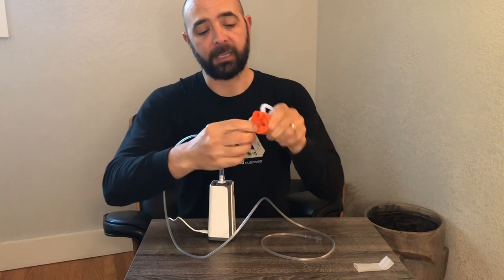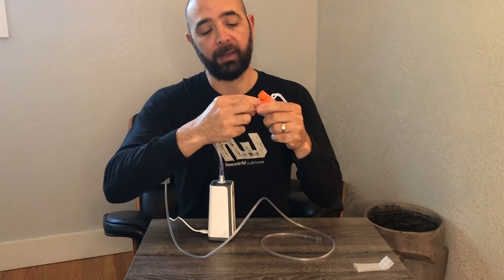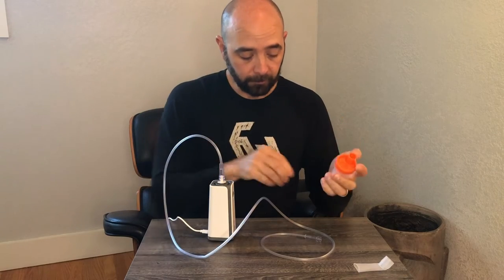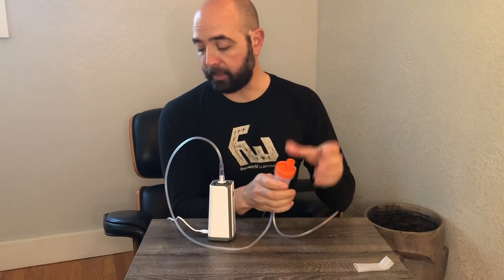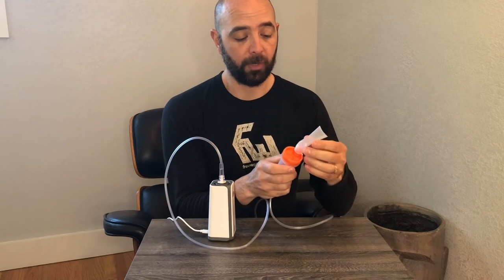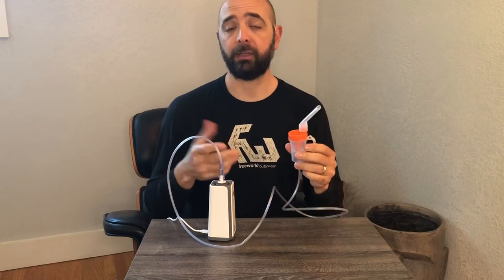There's a little cup on the top that you can close or open — that just allows more or less air to get in and mix. Take the other end of the hose and put it to the bottom, and then on the top is where you would add either the mouth or nose piece, whichever you prefer. Add that in and you're set up and ready to go.